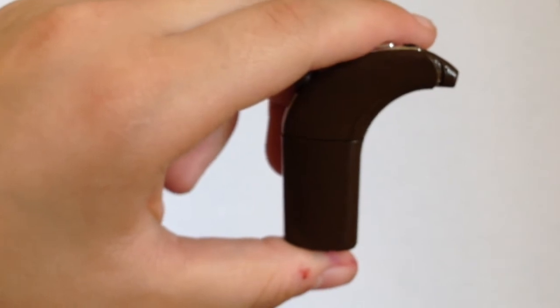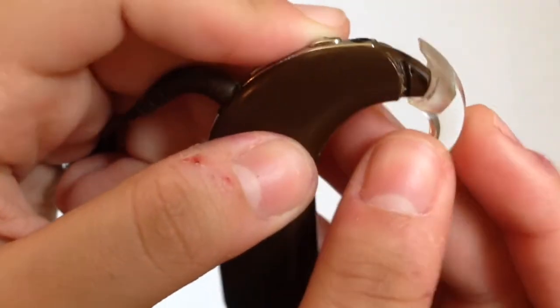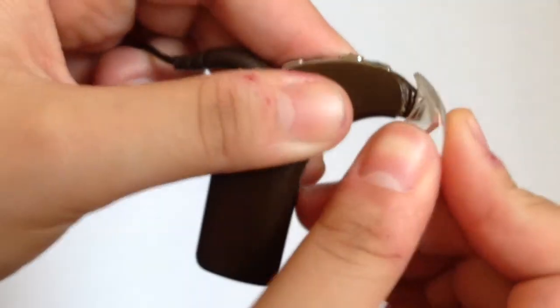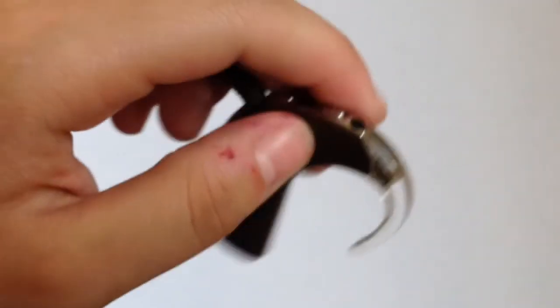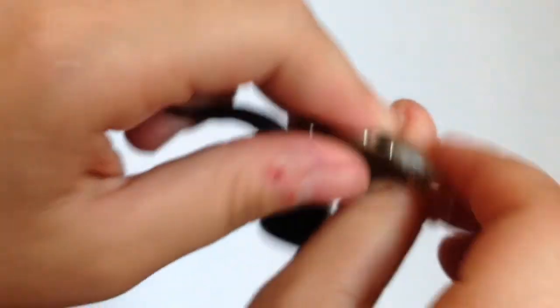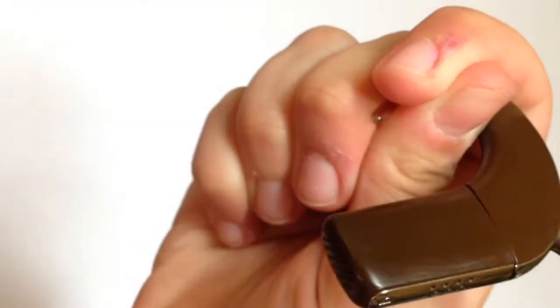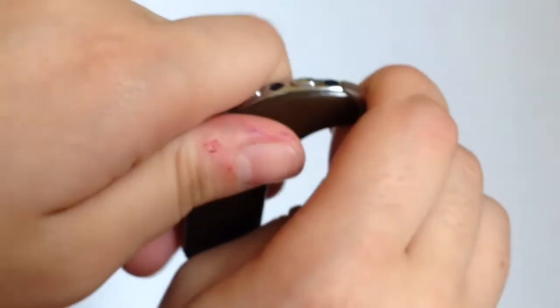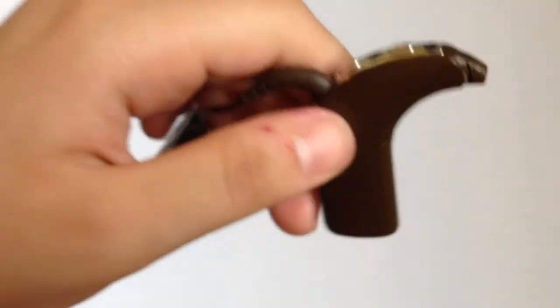So let's do this one more time. I'll show you guys how to put it on, just in case you didn't get it the first time. You just basically align it. It's pretty simple. And snap it on. That was faster than the first time. Okay. Now let's wrap our fingers around it. Hope that shows you guys how I'm doing it. Hope it's pretty clear. Got it? Now. Snap it off. Oh, that was easier than the first time.